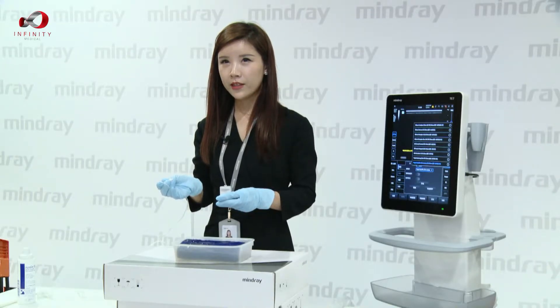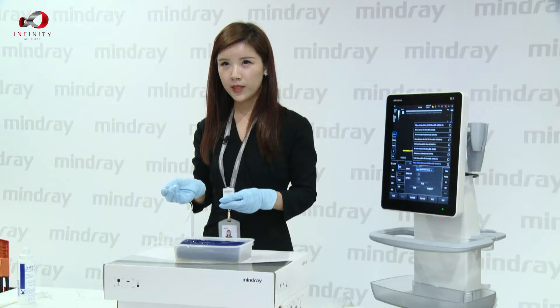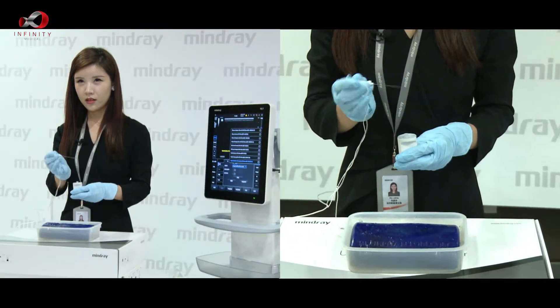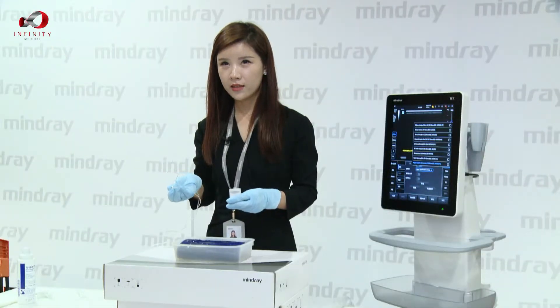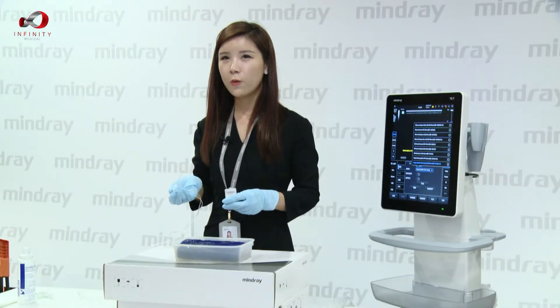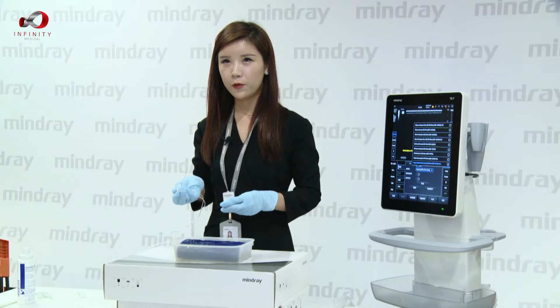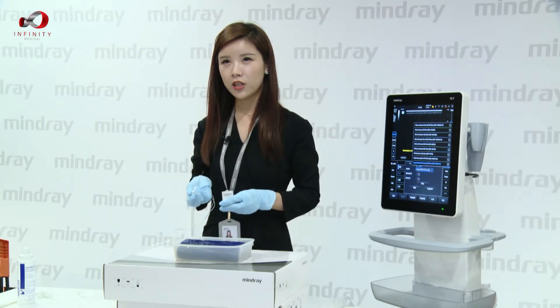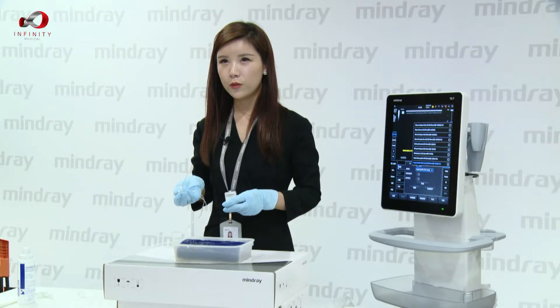The entire magnetization process only takes one to two seconds. Try not to repeat this movement, otherwise there will be more than one generated magnetic field, and during the procedure our transducer cannot distinguish which magnetic field should be tracked.